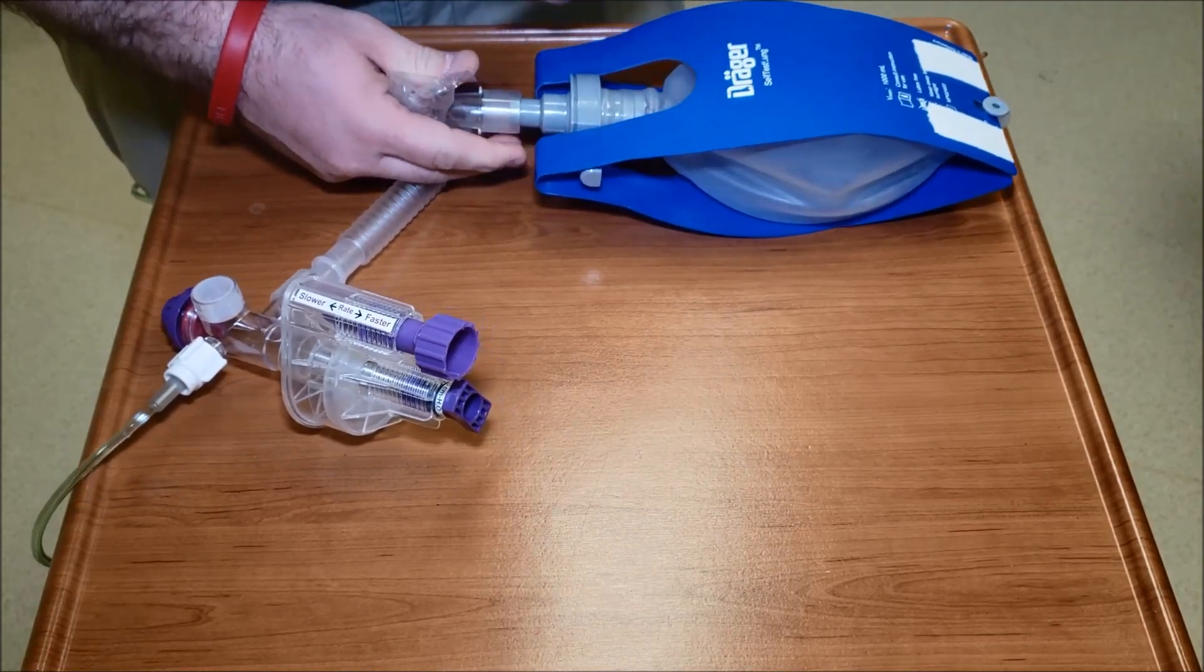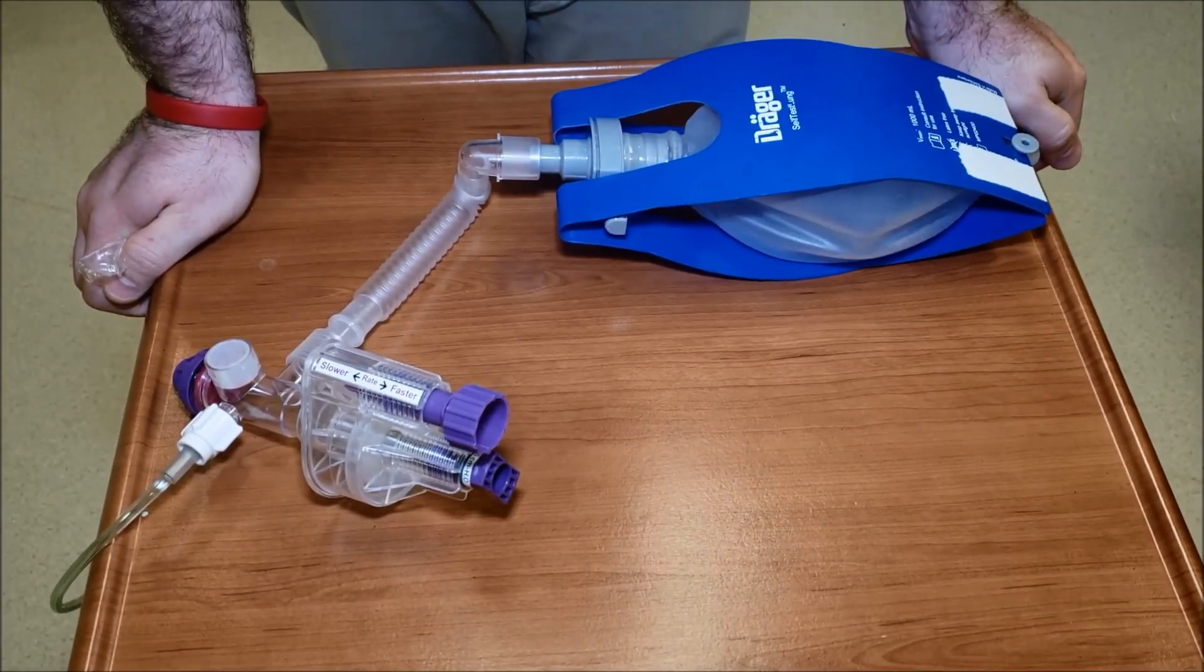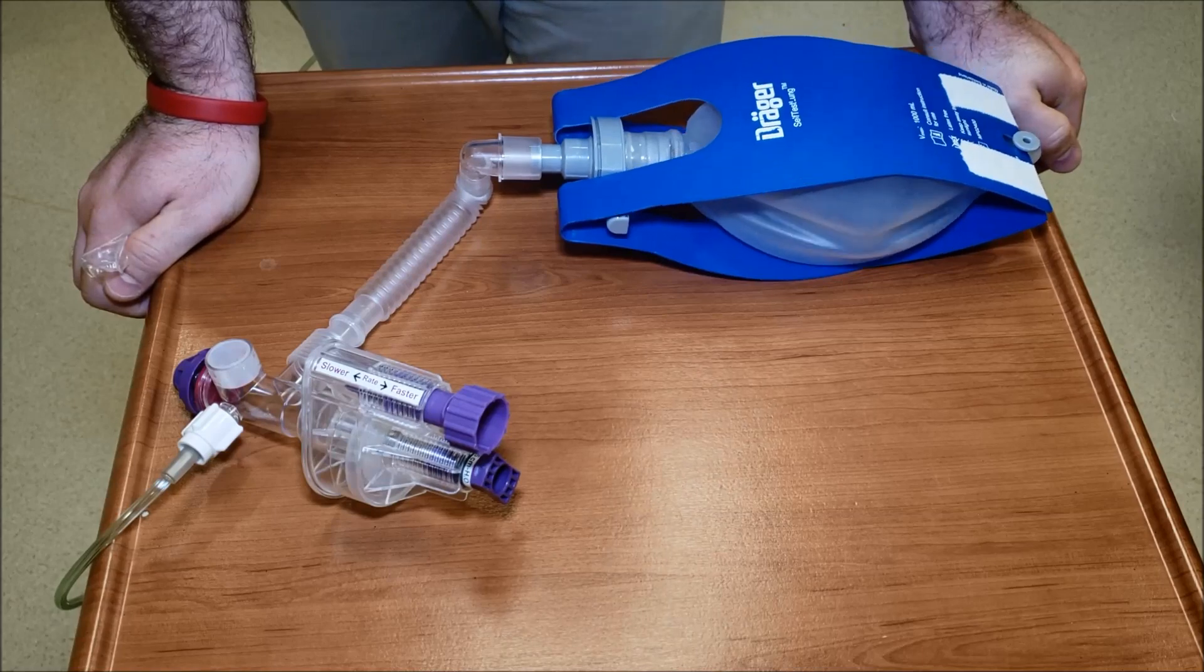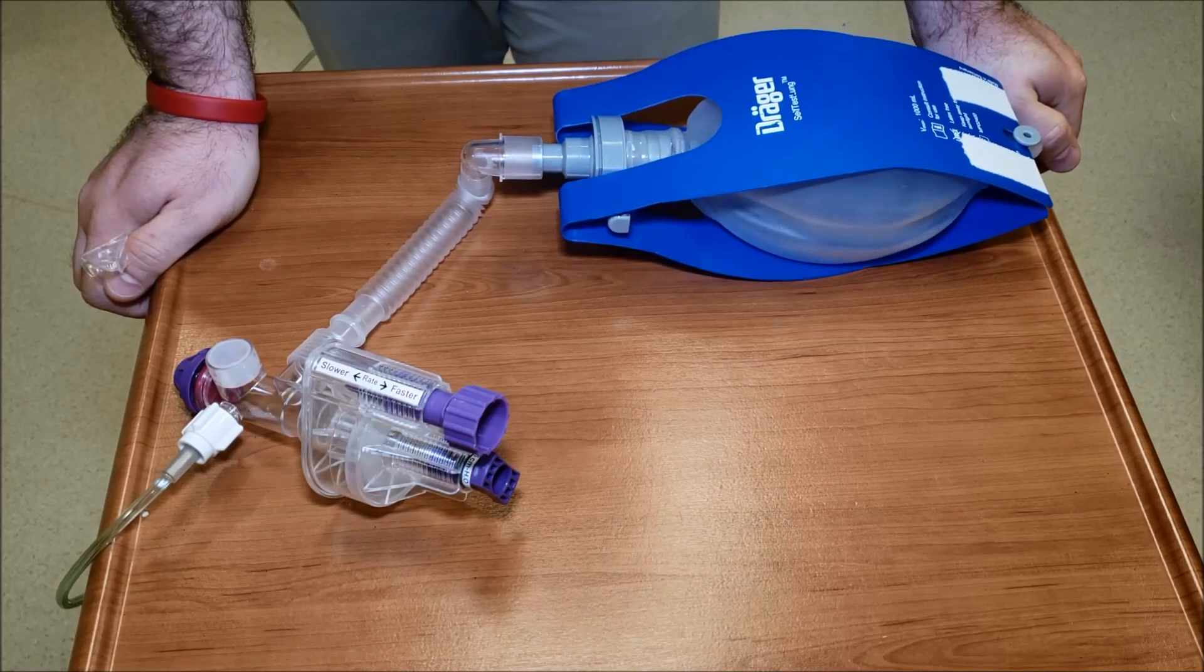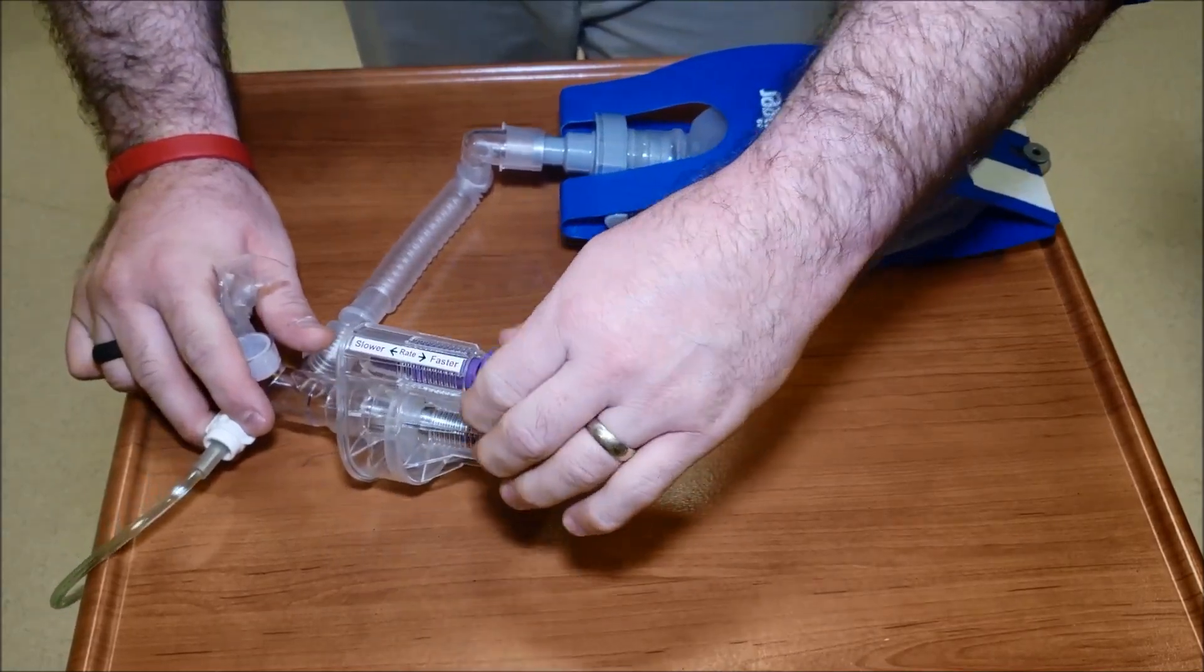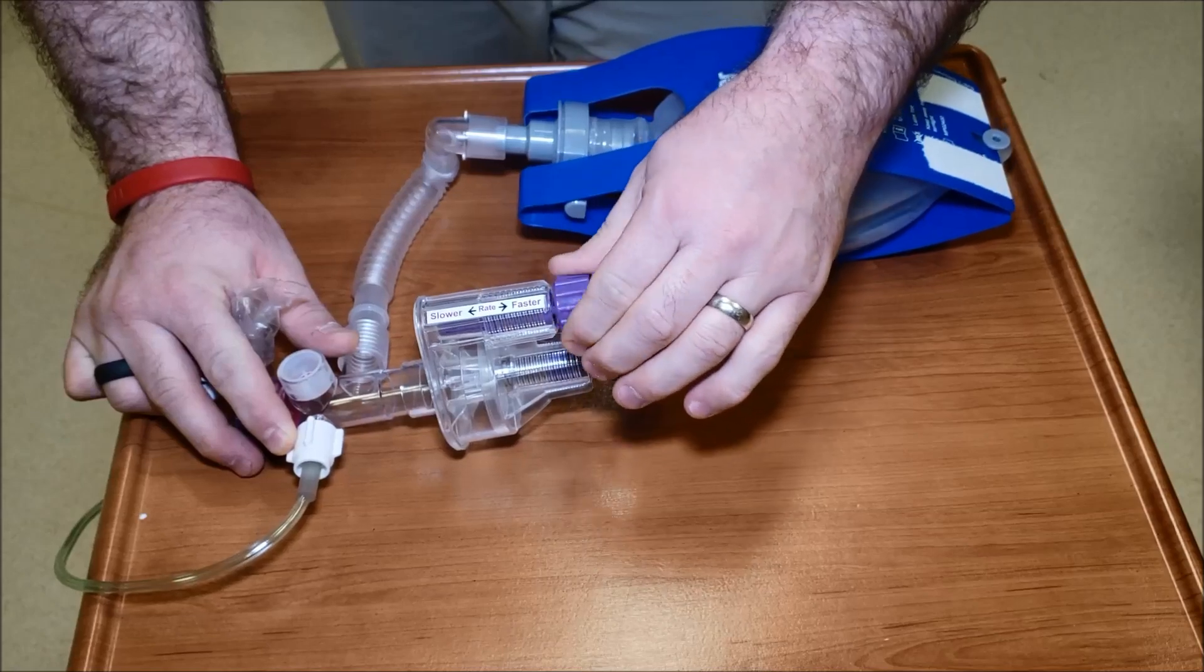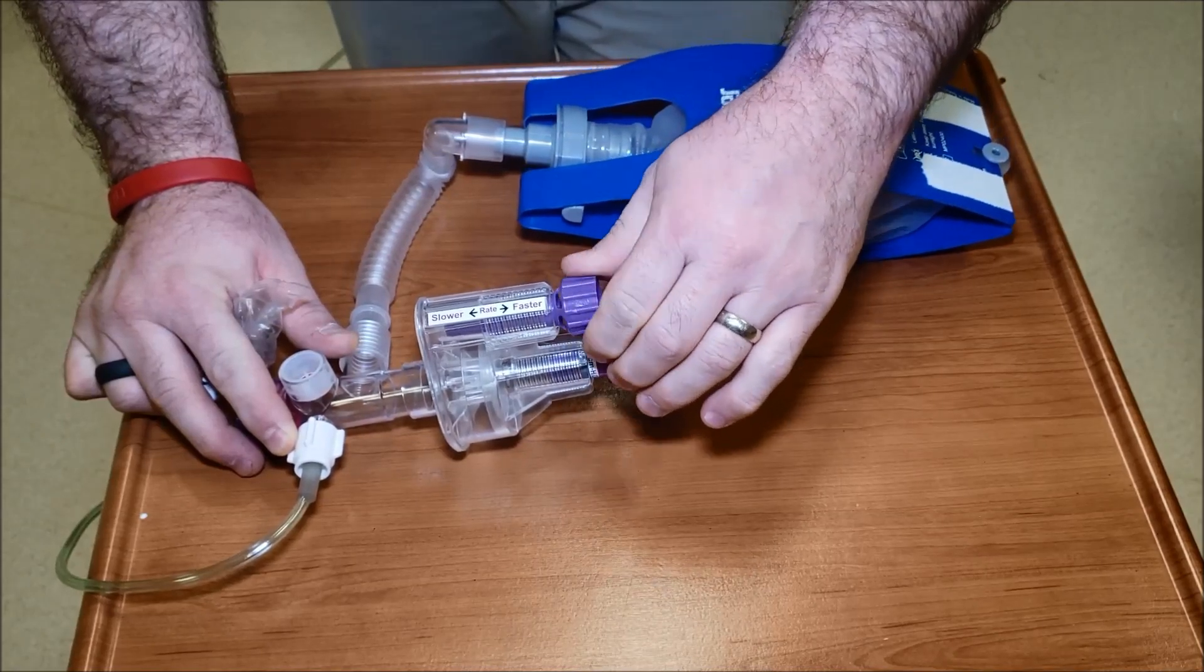This is made to be used quickly. As you can see now we're getting some auto cycling here and that's really what we should have. The key is to slow that rate down to as low as you can get it.